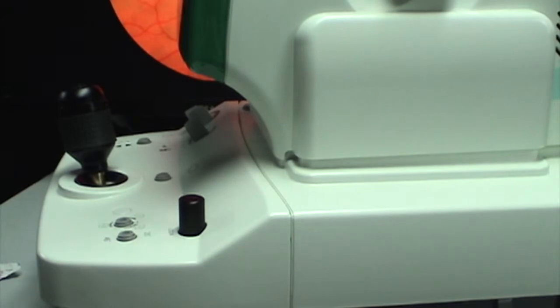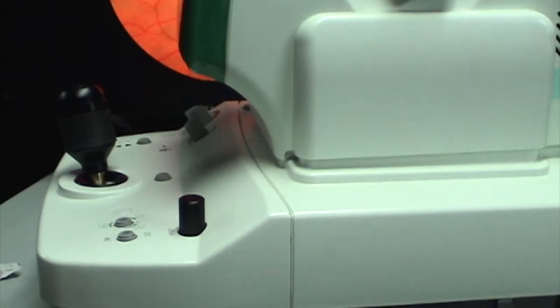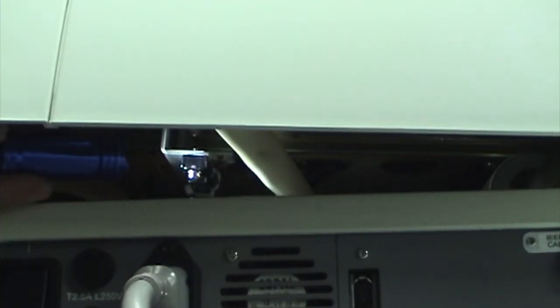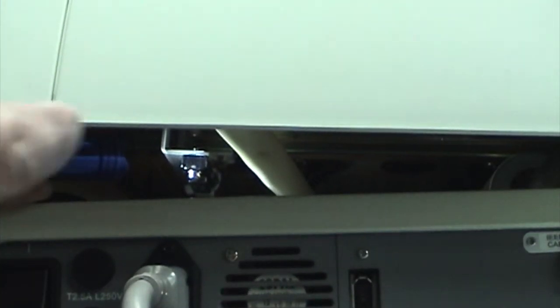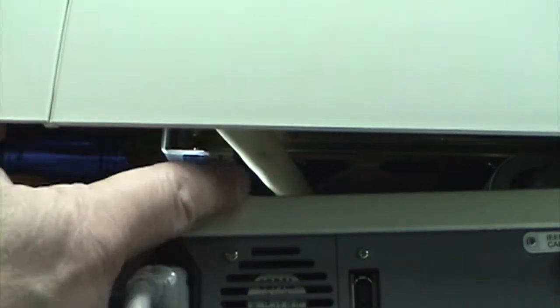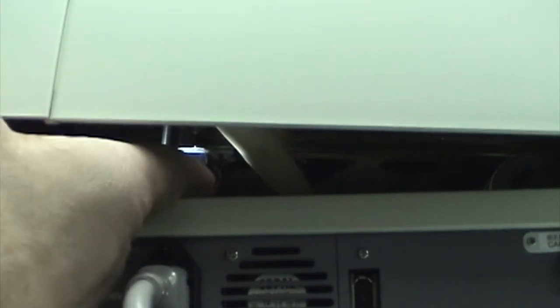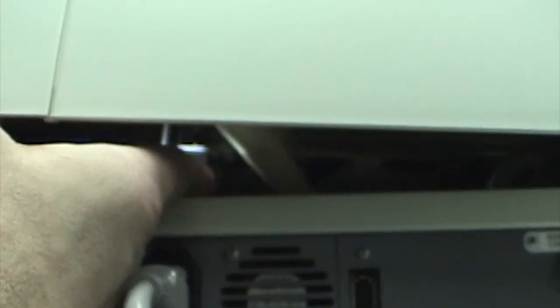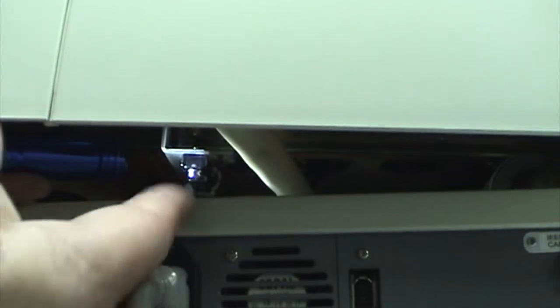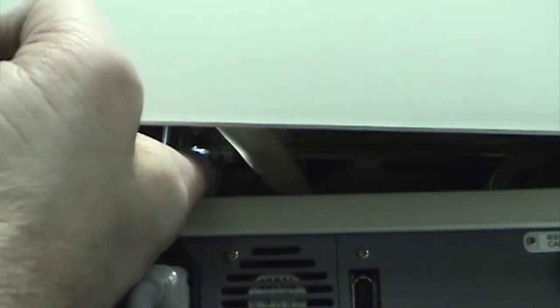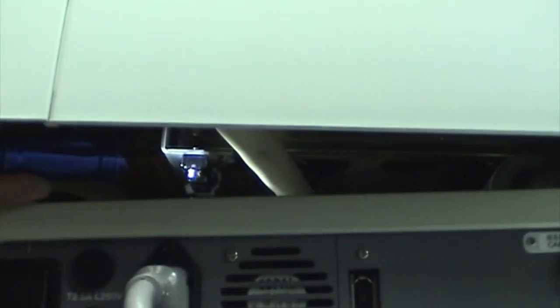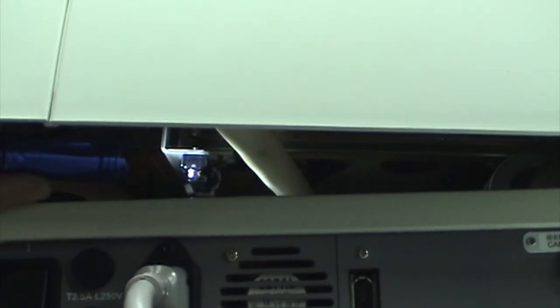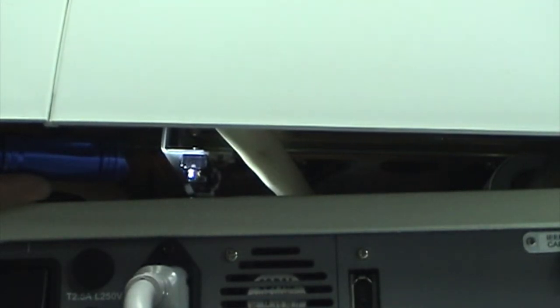Let me see if I can give you a look at what's under there so you know what you're looking for. Okay, so I've lifted the camera up and I've got a little flashlight pointing under here so you can see. This device right here is the sensor you're trying to clean. If you put the alcohol pad on your finger and give it a swipe, if there's any residue on that sensor, it should come clean. If that doesn't solve your problem, you may need to call for service.